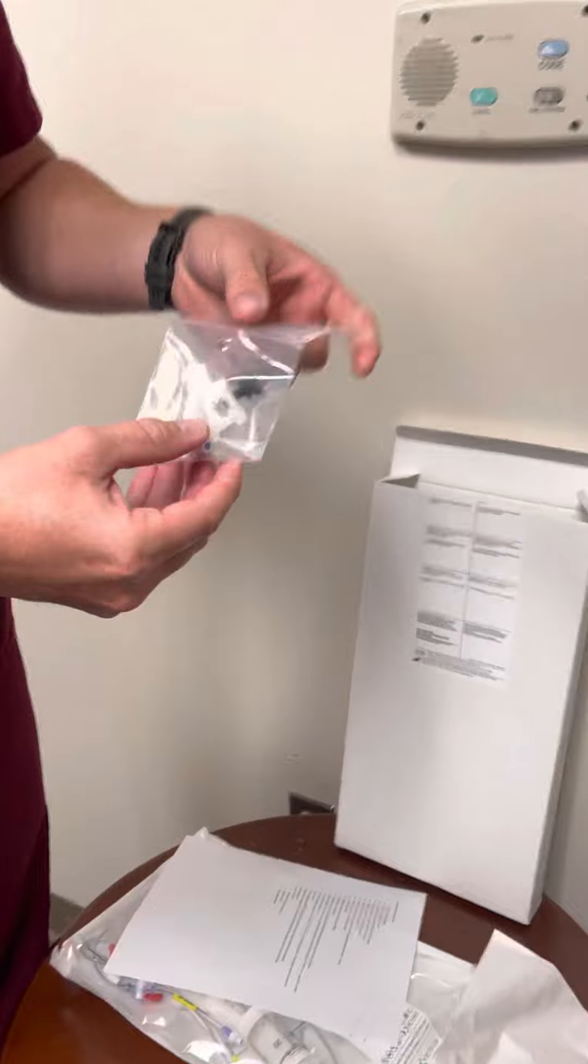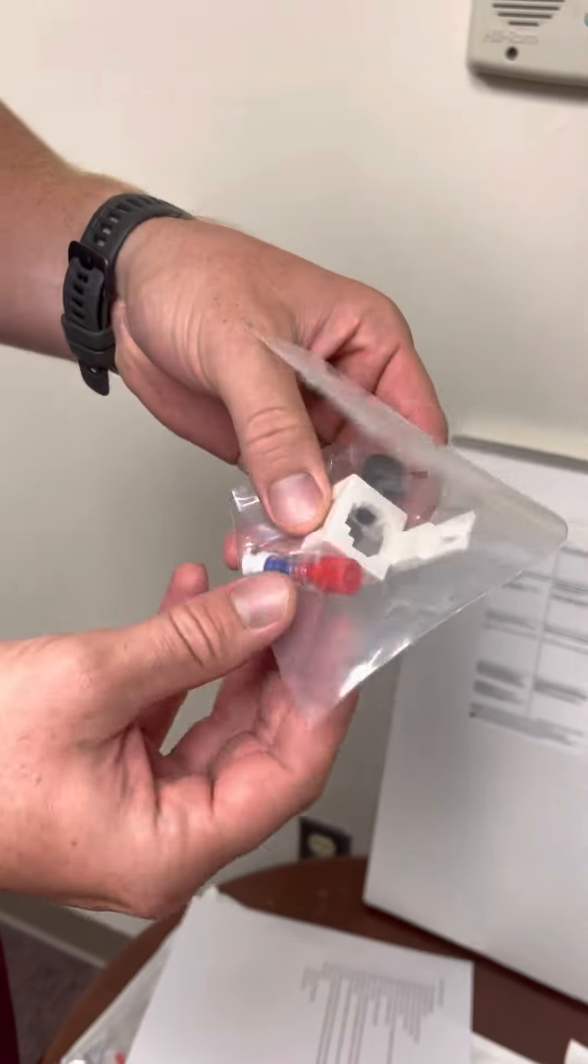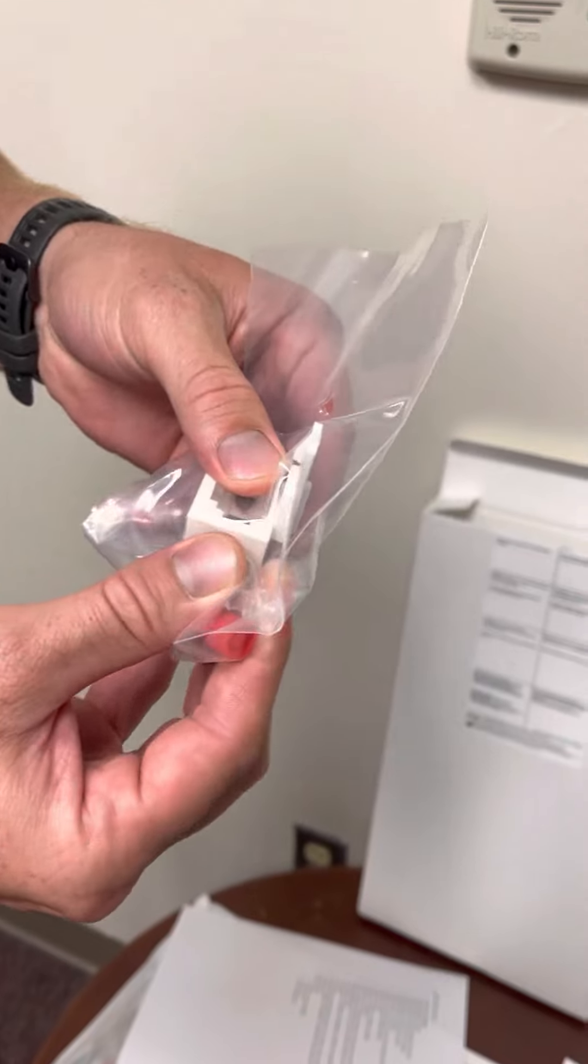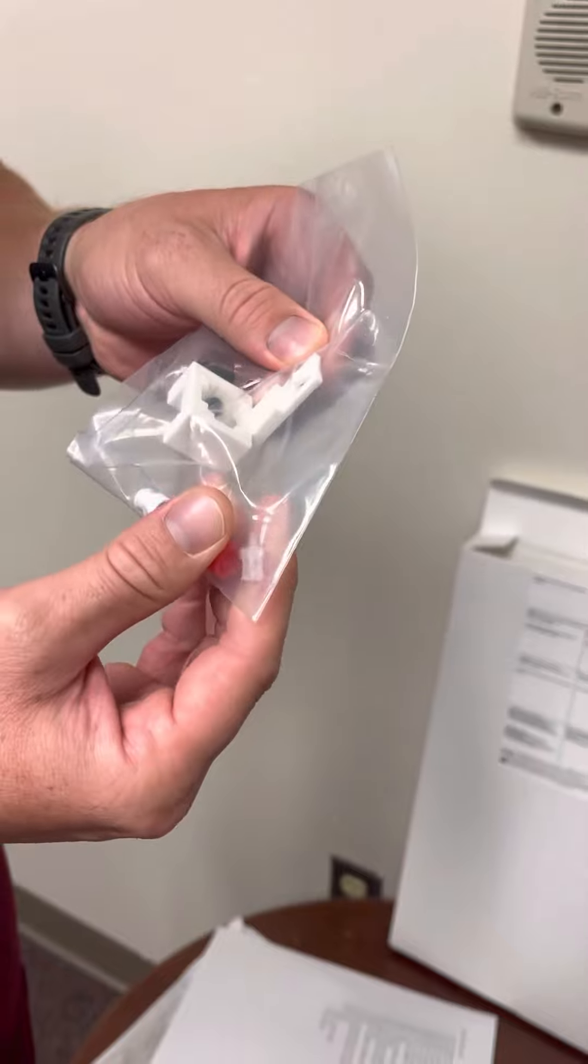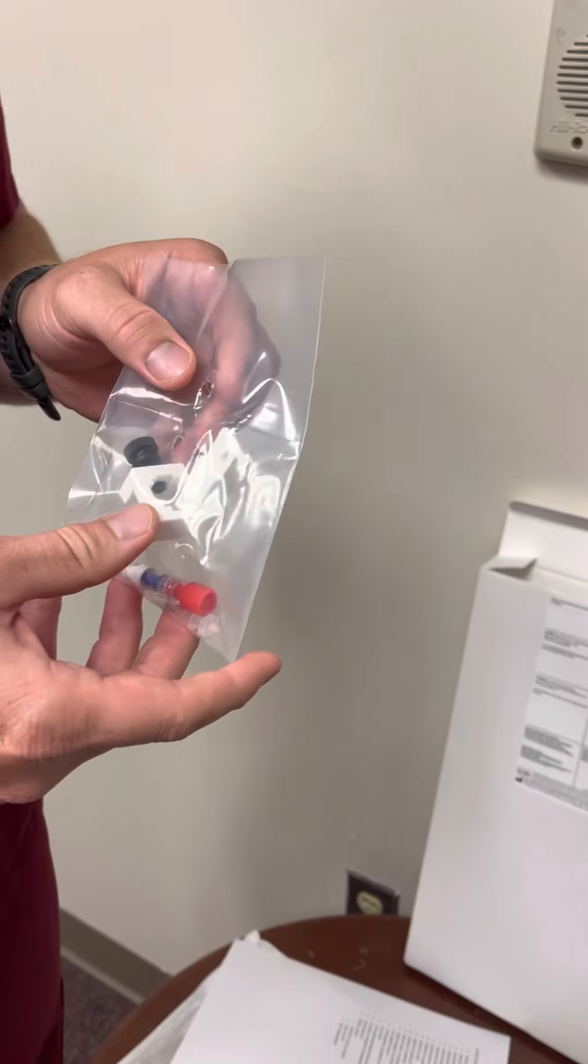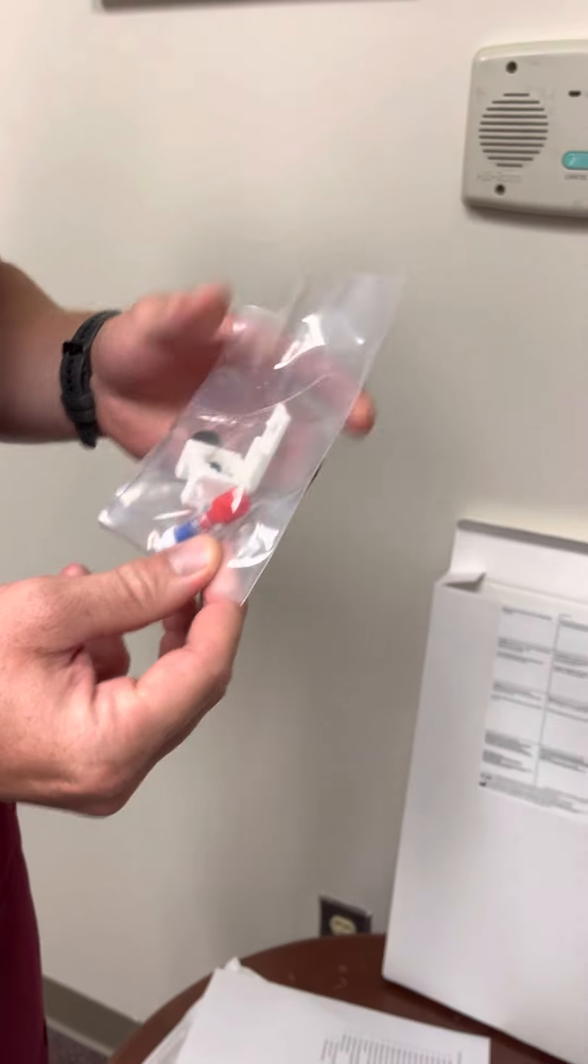Inside the box, it has two packages. This one small package, I want to key in on this little item. This is clear, the package is clear, just do not discard it. If for some reason you're placing the lumbar drain at bedside, all of this will be utilized.